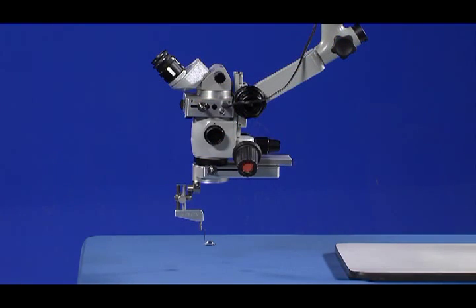This concludes the basic section of the Merlin surgical system instructional videos. You are encouraged to explore other instructional videos to learn the additional features and benefits of the Merlin surgical system as well as other in-depth topics pertaining to the system's use.